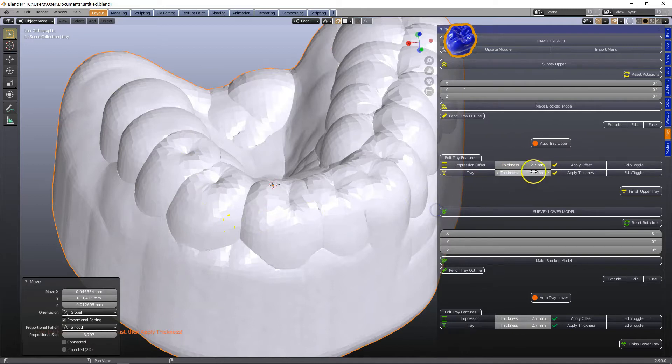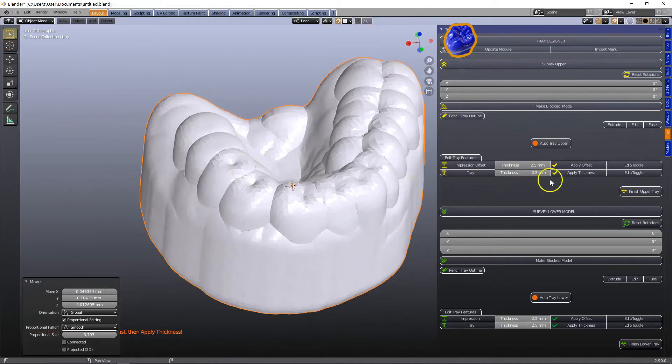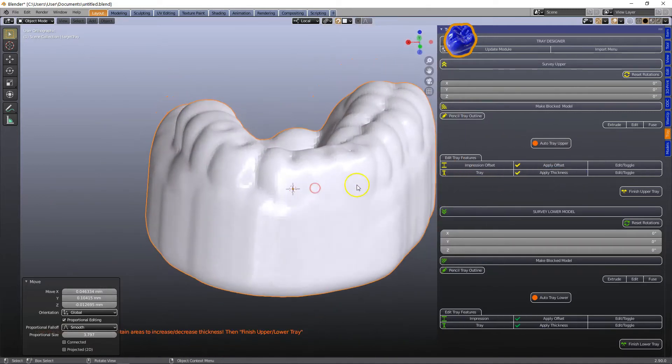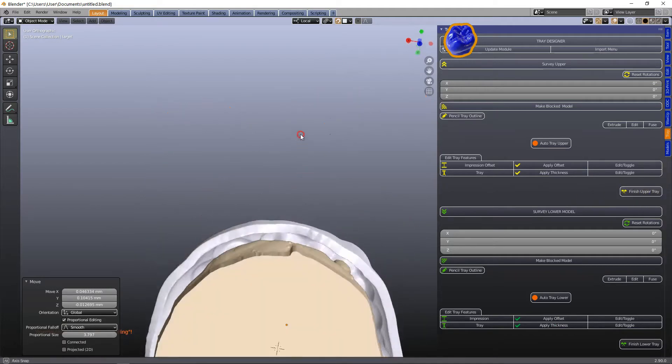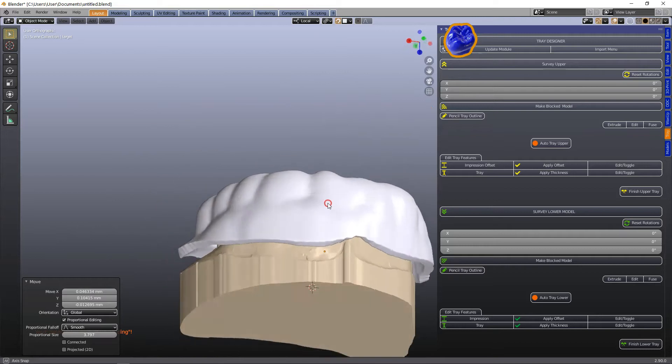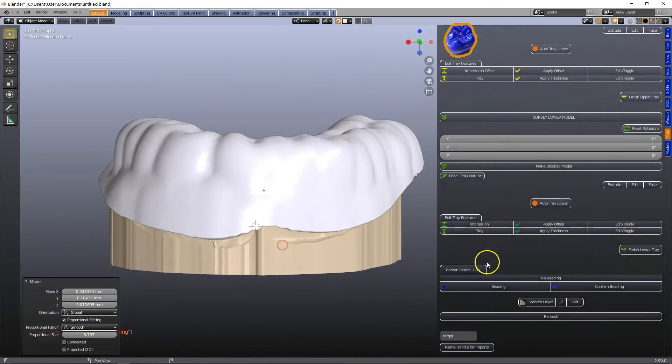So it's 2.7 we can make this thick or thin as we like. I've made a 2.5 and then apply and then finish up a tray which then cuts the layer to where your line was beforehand.